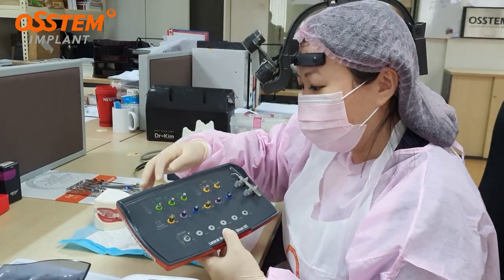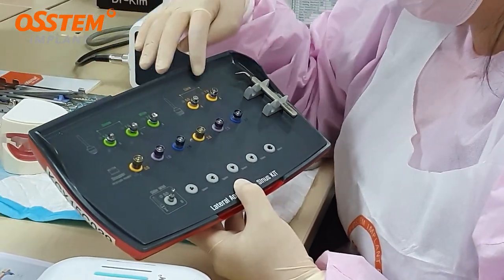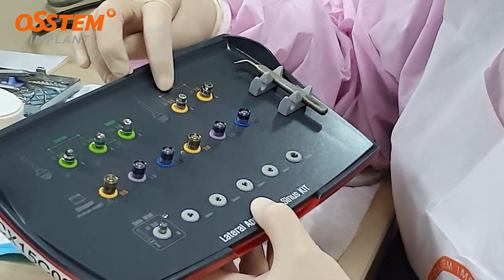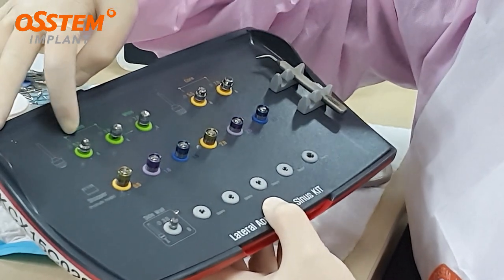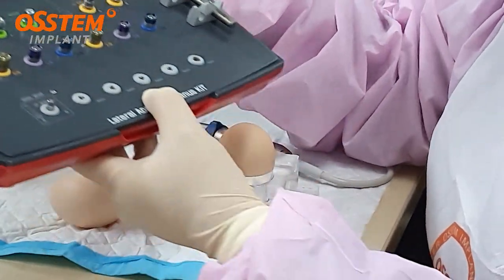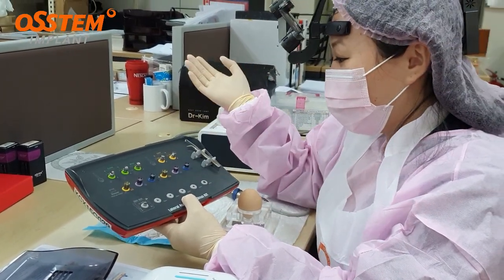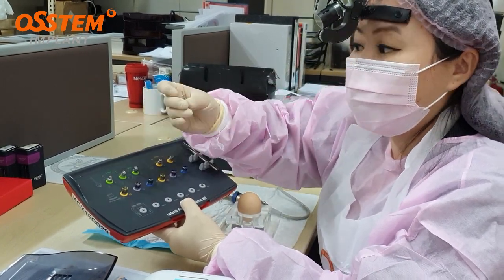If you can see from this area, it comes with two types of drill. The first one is the dome and the second one is the core drill. For the core one, it comes with diameters of 5.5 and 7. For the dome one, it also comes with 5.5 and 7, and there's a white one with 7. You will be able to see six different stoppers from 0.5 up to 3mm. Last but not least would be the sidewall drill.